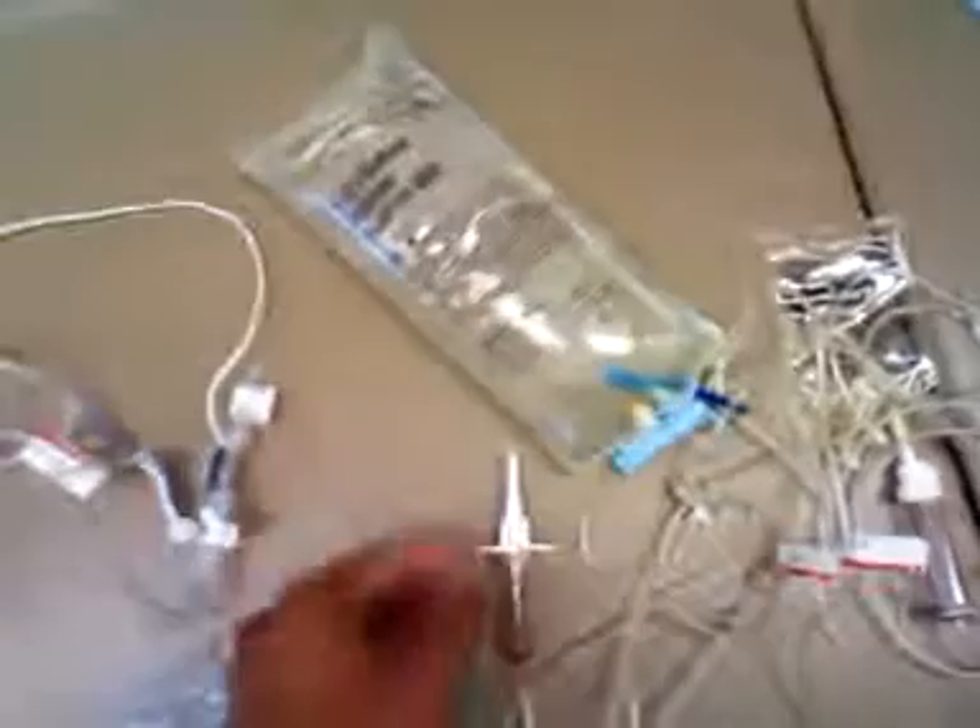There's an IV bag. Yeah, I think that's what I put, but it's probably different. It looks like an ECG or two. What is this? There's an IV. That's a Dobhoff. It's a Dobhoff. Dobhoff?